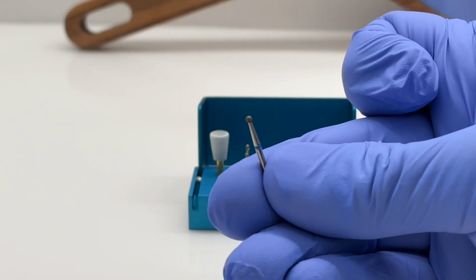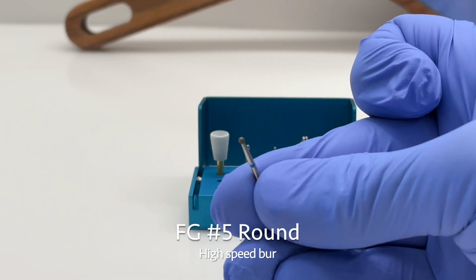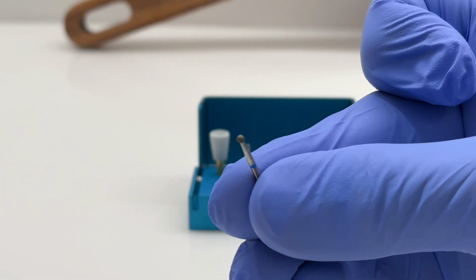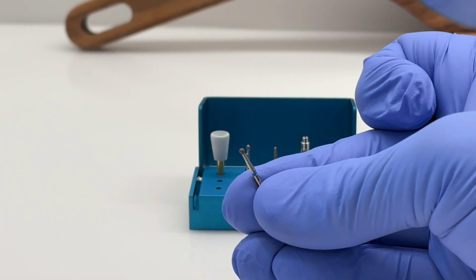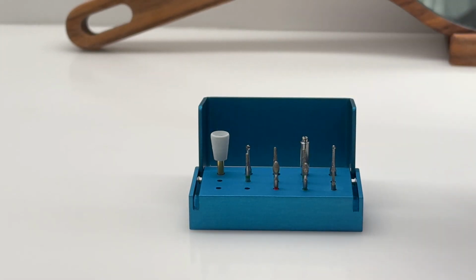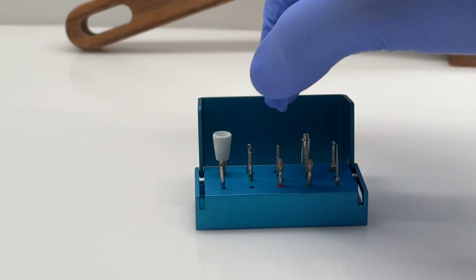Next, we have our FG number 5 round burr. This is a high speed burr, typically used for entering the cavity prep or using it for the initial prep and removing some of the carious dentin.